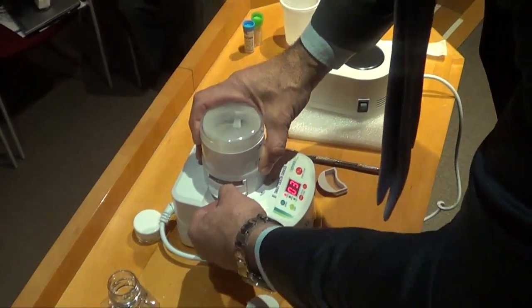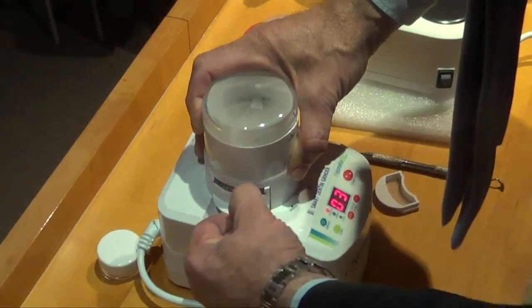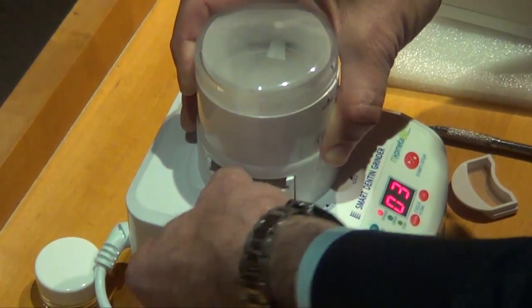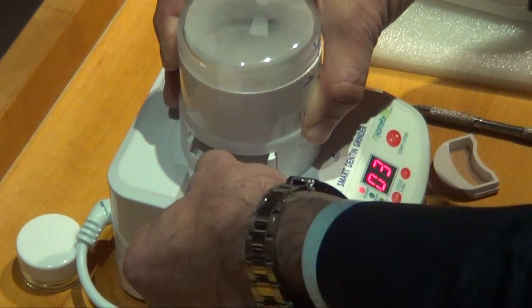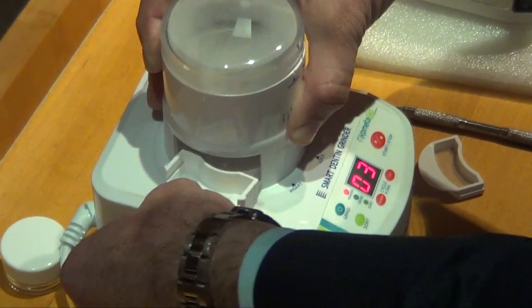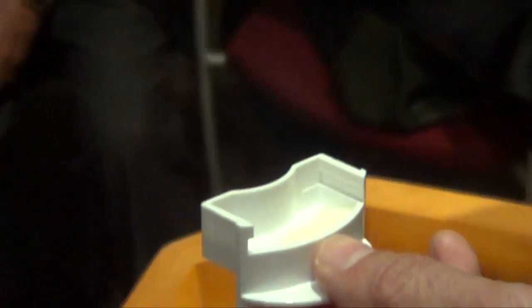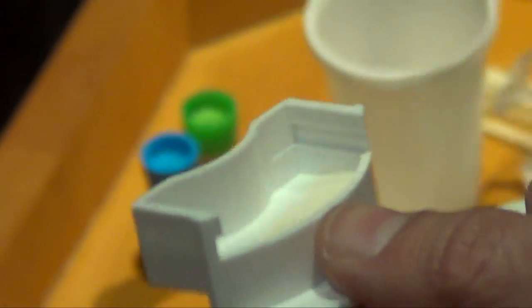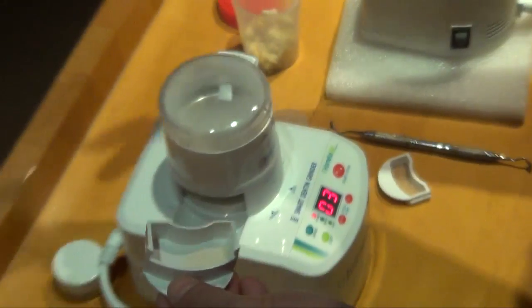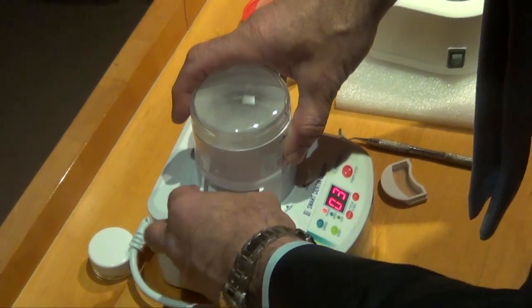In the lower compartment, in the lower drawer, we've got the material which is less than 200 microns. As we think it's not useful, so we just throw it away. That's it, it's all the process.